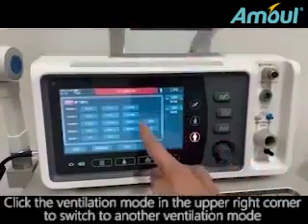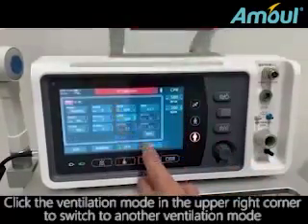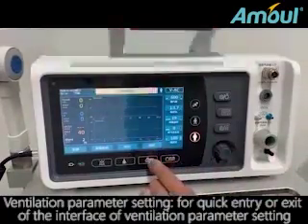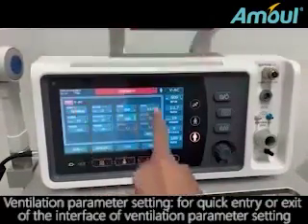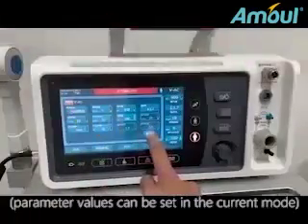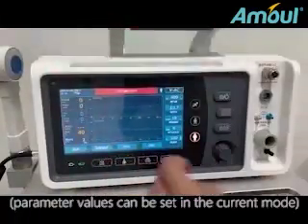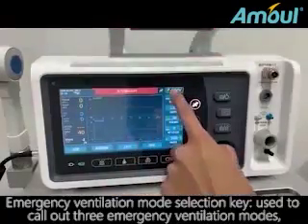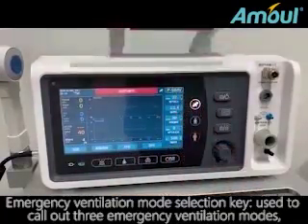Click the ventilation mode in the upper right corner to switch to another ventilation mode. Ventilation parameter setting, for quick entry or exit of the interface of ventilation parameter setting. Parameter values can be set in the current mode. Emergency ventilation mode selection key, used to call out 3 emergency ventilation modes.